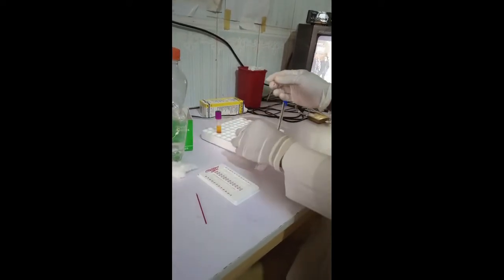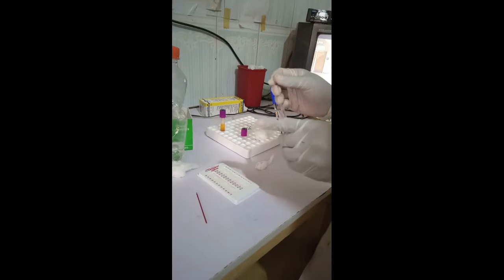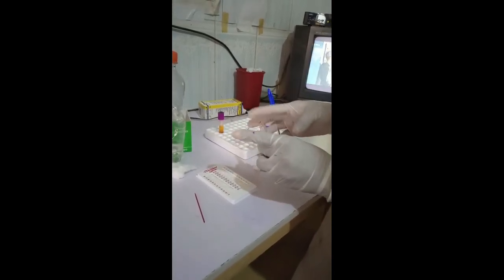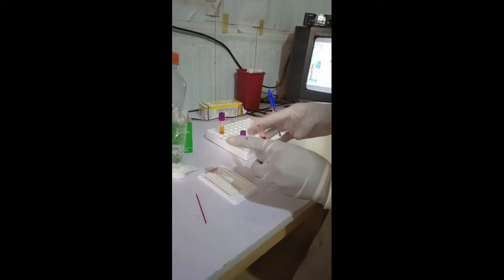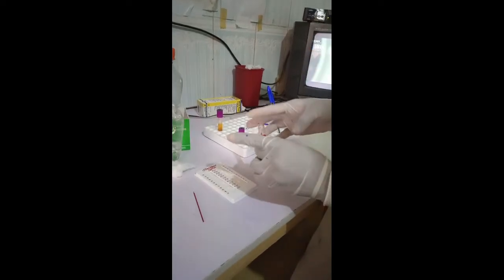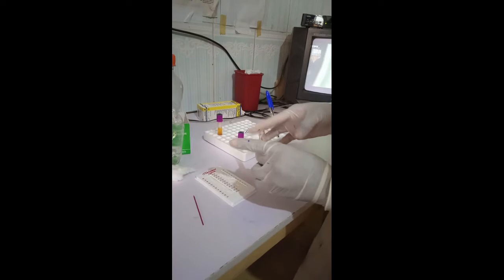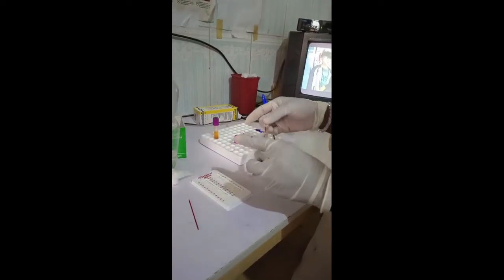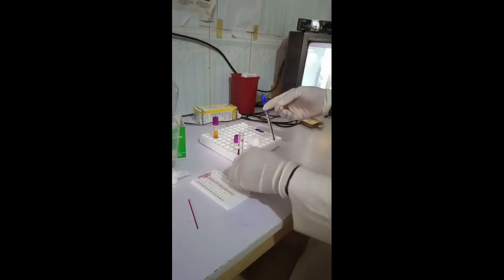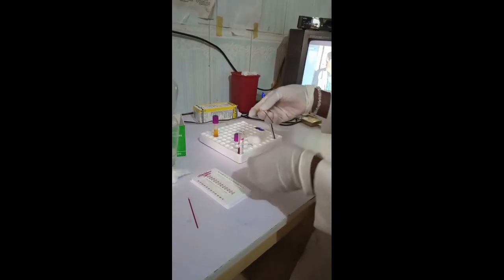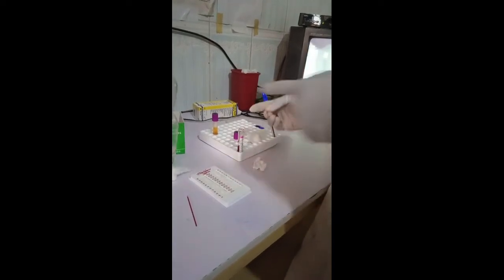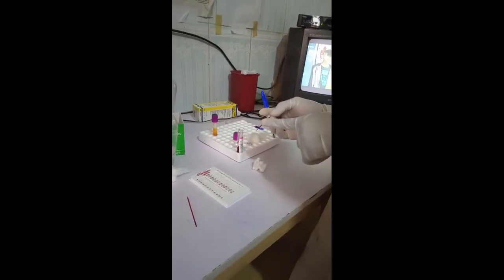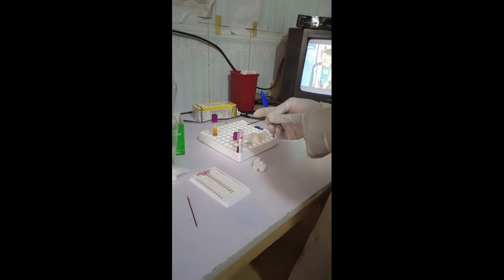Now in the second method of filling, you dip in the capillary tube and tap one end of it. You see the blood moving on its own by capillary action without you tilting it. See the blood moving. Be sure to fill your capillary tube at least two-thirds or three-quarters of this tube like this.